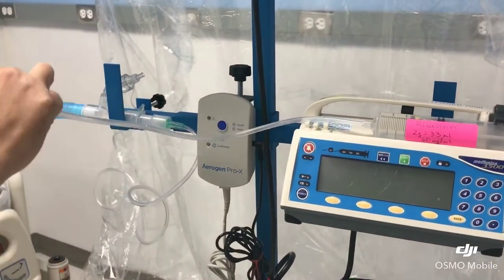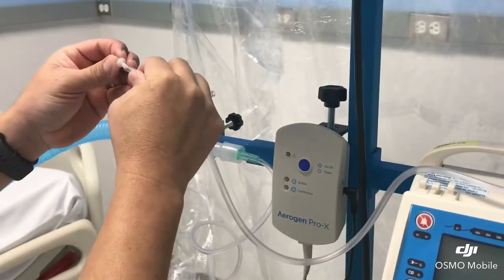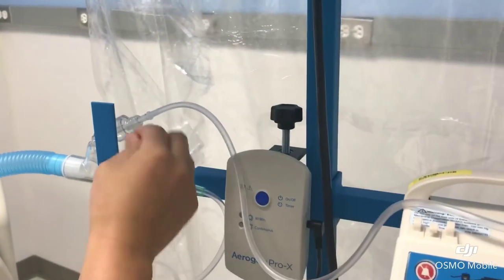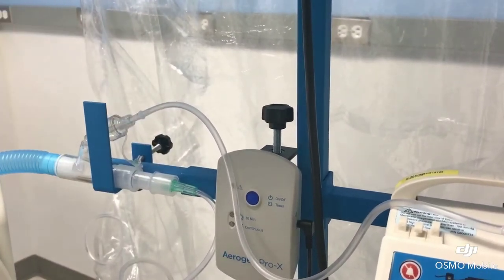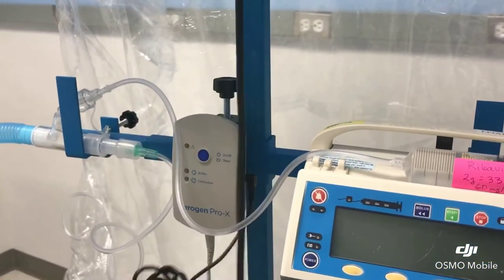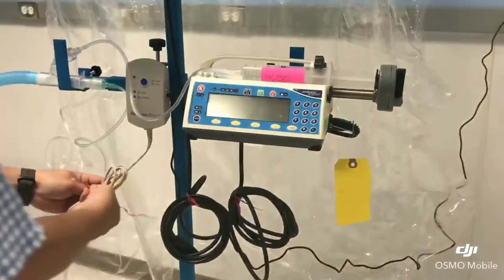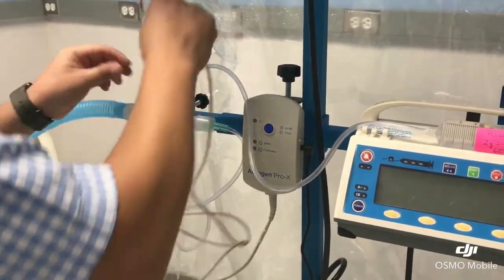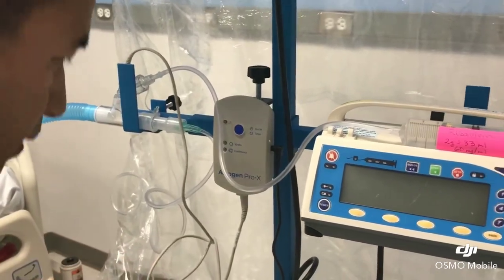And we're going to use this little bird adapter, and it's going to fit into this little lock. You remember I mentioned not to tighten this little lock yet — just leave it there. Now go ahead and set up, hook up your connection just like you normally do. And then the pump — the other end — hook up to here.